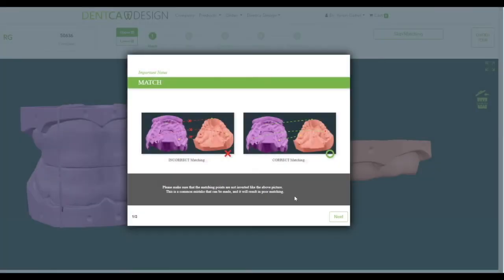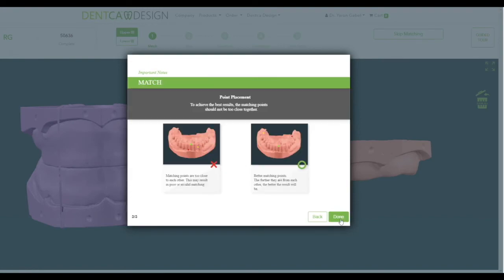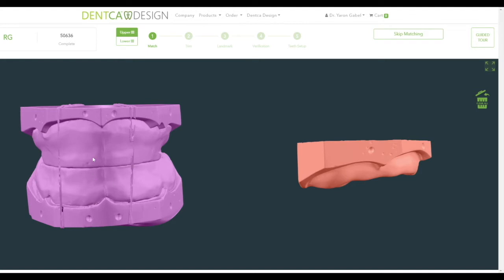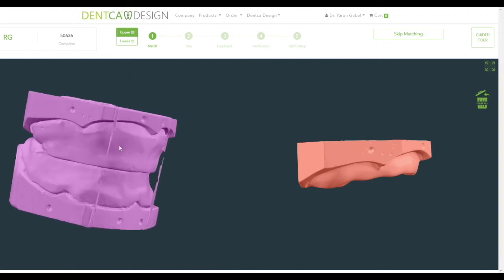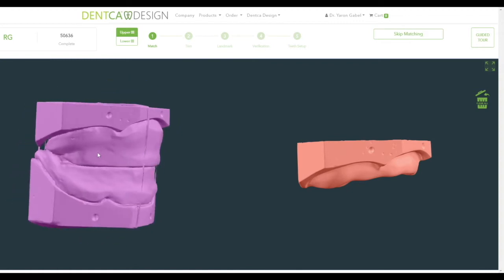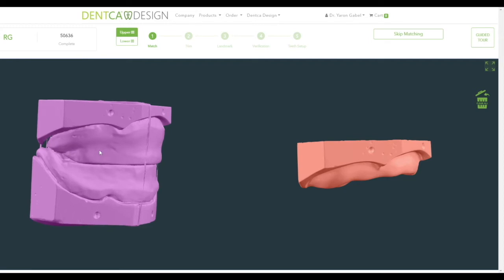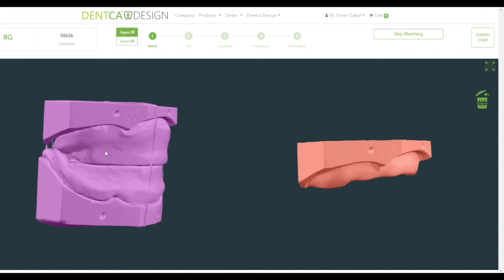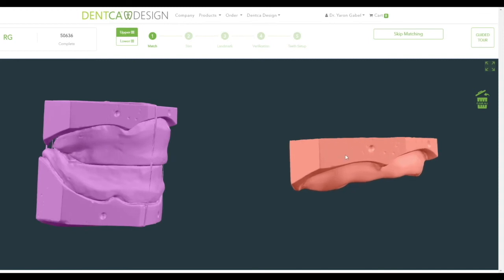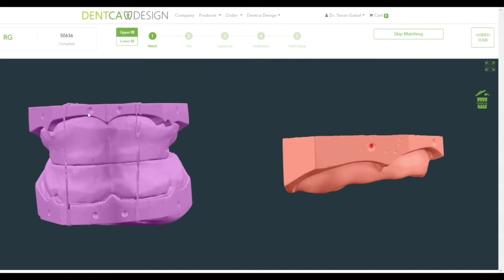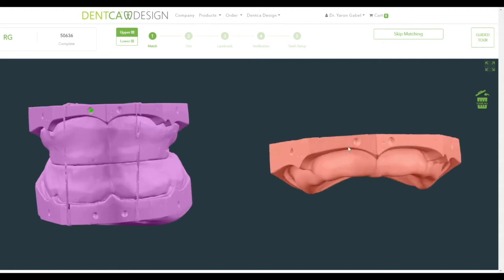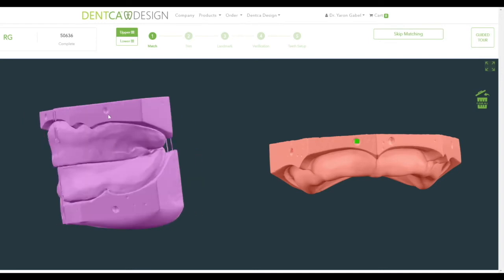Now let's begin the matching process. During this stage, we will start by matching the maxillary arch with the bite. On the 3D rendered screen, you may move or rotate the models by pressing down on the left or right mouse button on the model and dragging it in the desired direction. Pressing down the wheel or middle button on the mouse will allow you to drag the impression to the center of the screen. Use the mouse wheel to zoom in and out. To begin matching, click on an identifiable point on the bite scan to add a colored marker and then click on the same area on the maxillary model. Repeat the same with two more areas. It is important that the colored shapes correspond to each other. To ensure better matching, we recommend placing points sufficiently spread out.